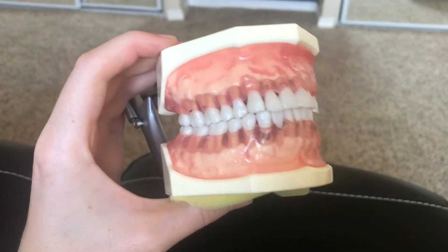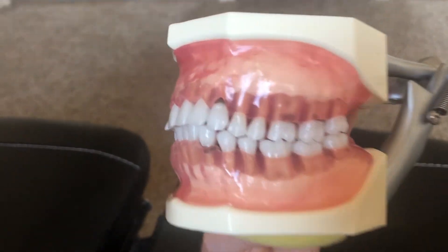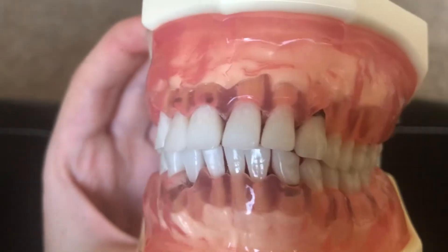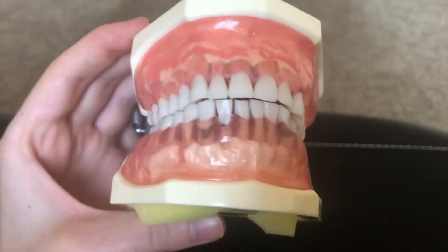Here is a better all-around look. It has the complete crown and root, and as you can see, the dark spots are actually calculus.